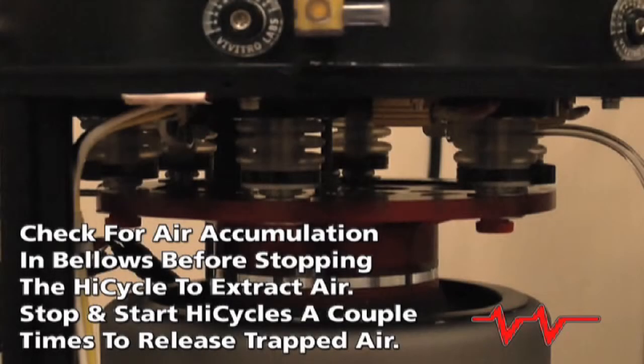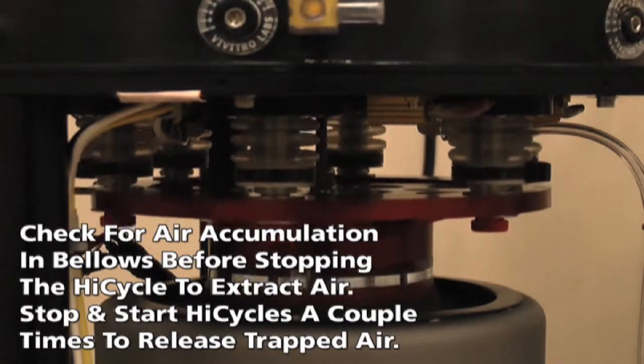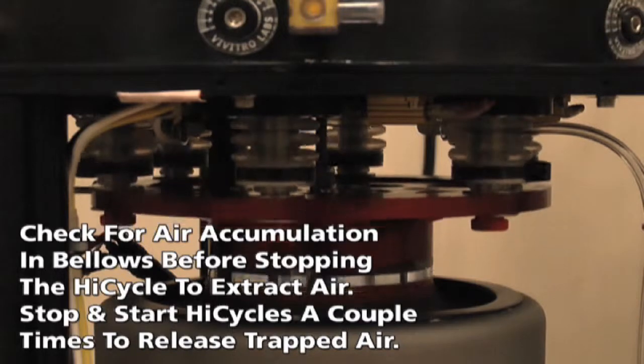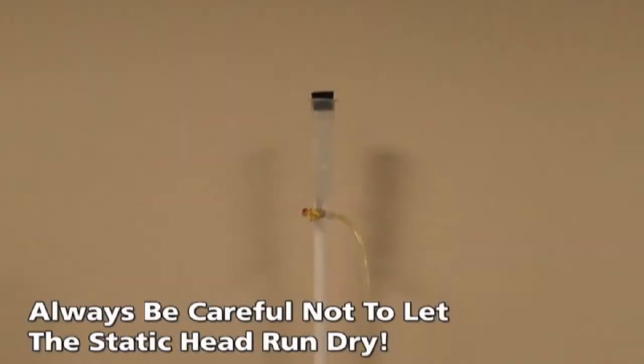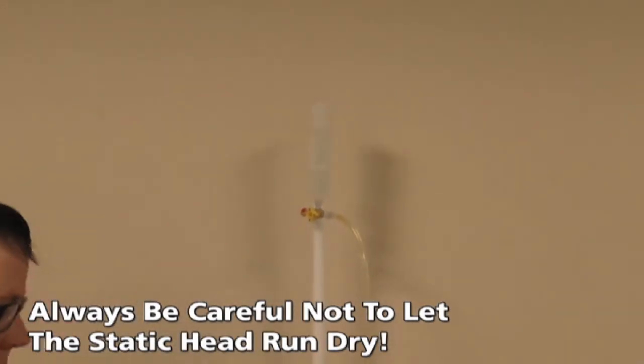Keep in mind that air sometimes accumulates in the bellows and releases when the HiCycle is stopped then started again. If this is the case, the HiCycle can be stopped and started a couple times to release the trapped air, which can then be extracted. It is a good idea to do this before stopping the HiCycle to extract air, as more bubbles may be released when the HiCycle starts again. With any of these extraction techniques, always be careful not to let the static head run dry.